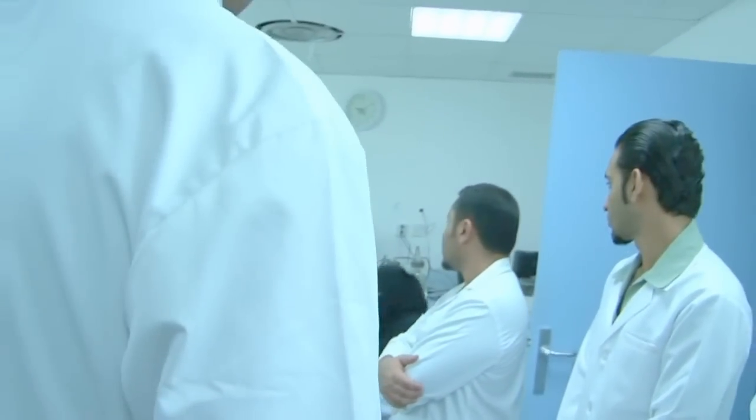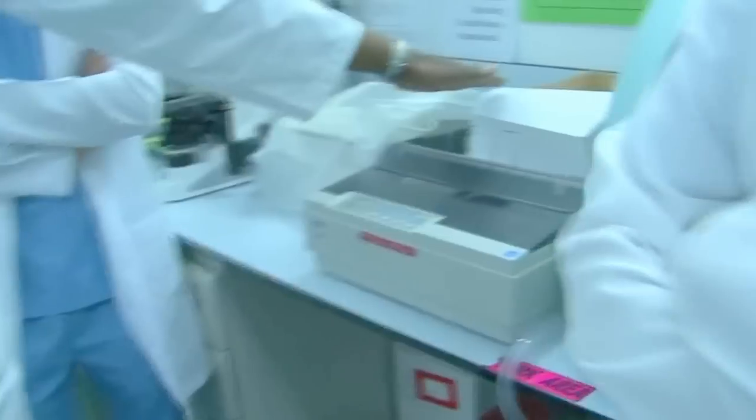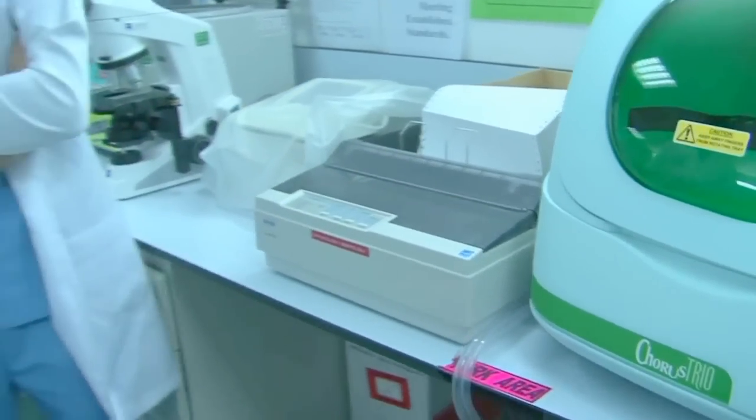Okay, so that is an ELISA washer. See those bottles, and that is an ELISA reader, which can be run by computer, and you have your results computerized. And this, for example, is a printer, also used with the ELISA reader. The reading is done using optic density, and then you can see whether it is positive or negative according to the optic density provided by the company. The company which gives you the test will tell you which optic density should be used for screening these samples.